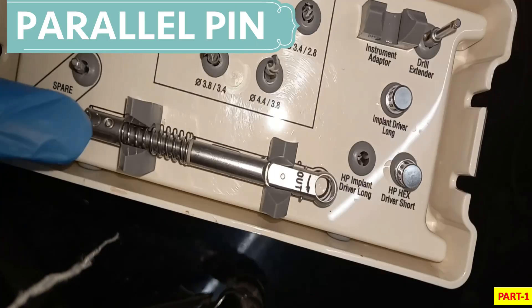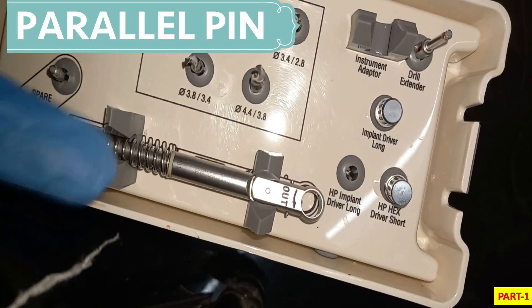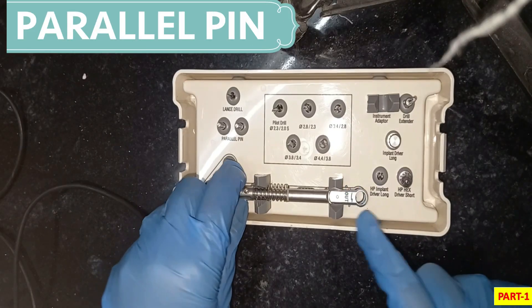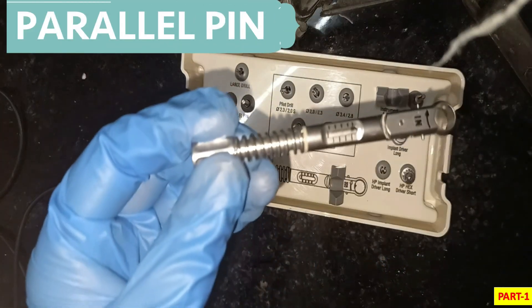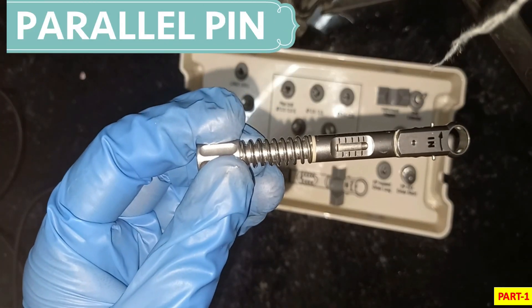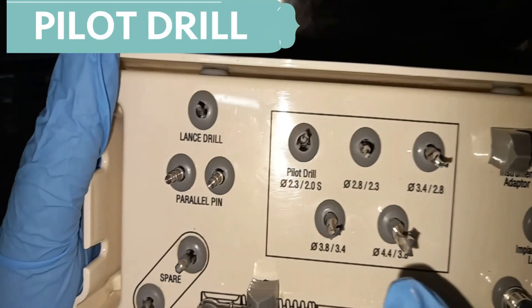Then we have a ratchet. I'm going to tell you the function of the ratchet in detail in my next part. This is a very important tool — it is used to measure the torque and to place the implant.